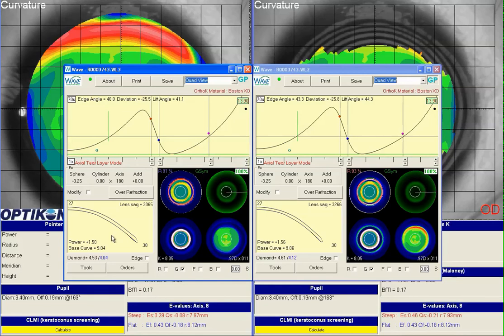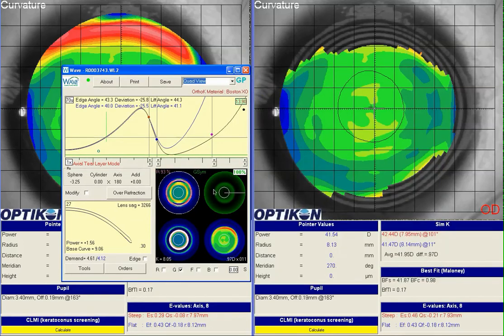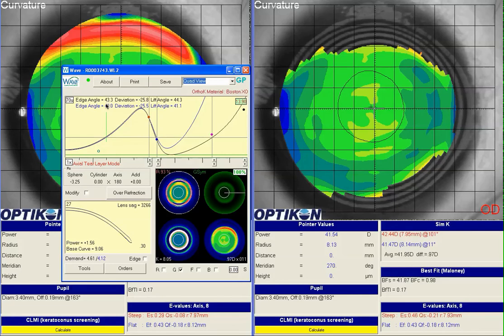The last thing I'll do is use one of Waves's newer features, which is the compare feature. Now we can see the tear layer for both lenses — the blue line is the proposed new lens and the black line is the patient's current lens. There's a little bit of difference at the back surface of the optic zone, but the really big difference is out in the periphery. Some of this peripheral difference is because I went with a 40 degree edge angle, whereas the original was around 43, and I think 43 is a little bit steep, which would prop the lens up and lift it away from the cornea even more.